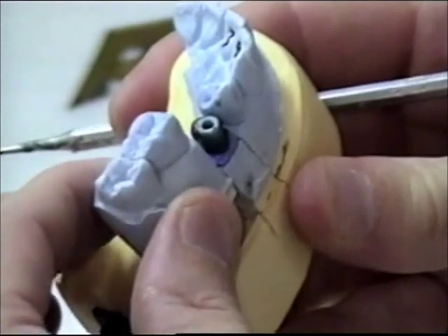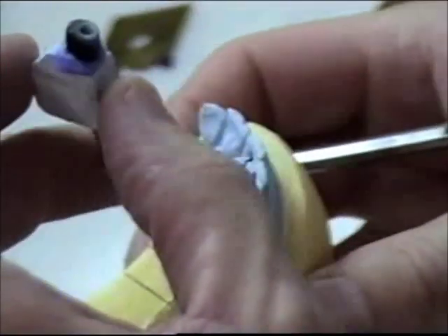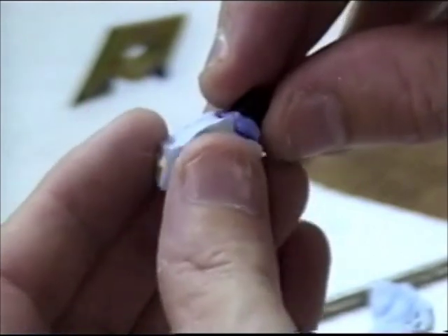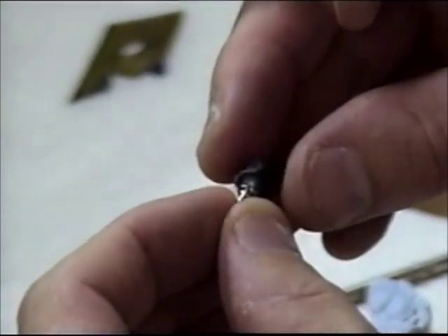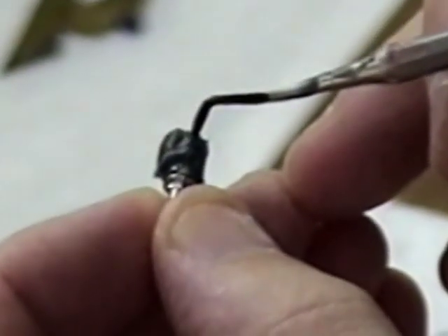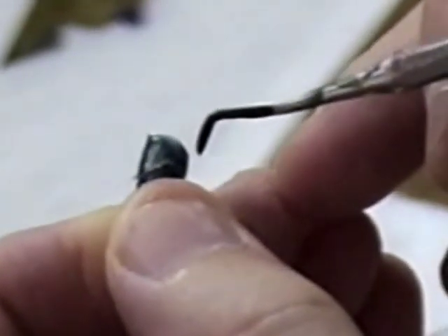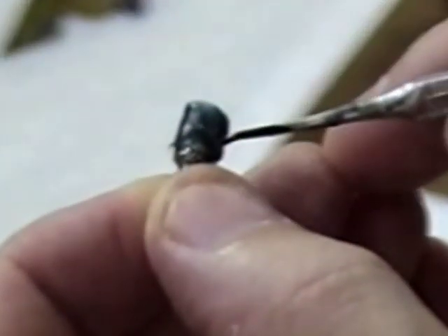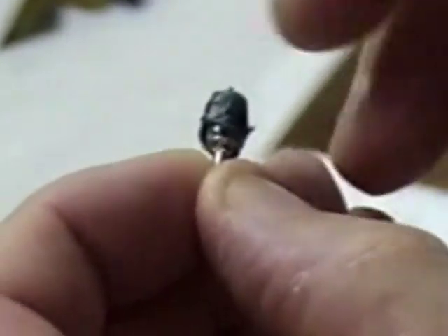What I am going to do now is take the abutment — the implant abutment — out. I never used a screw on this, just snapped it in place when I waxed it. And you can see the voids here. You can see the top of the margin here now, and you can see this void here where I was not able to flow wax down to the base. So I am going to flow that in now.